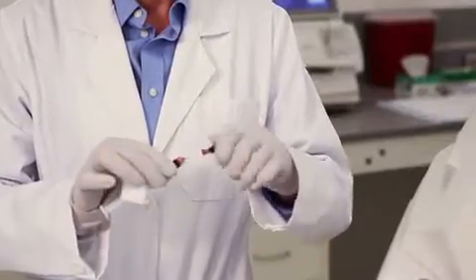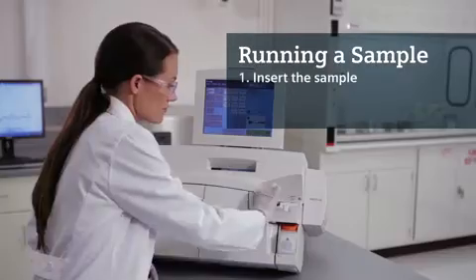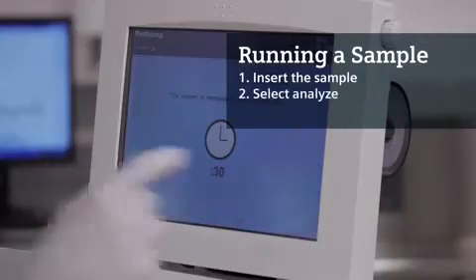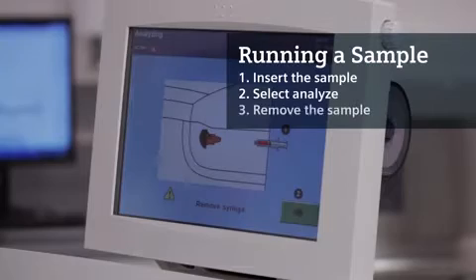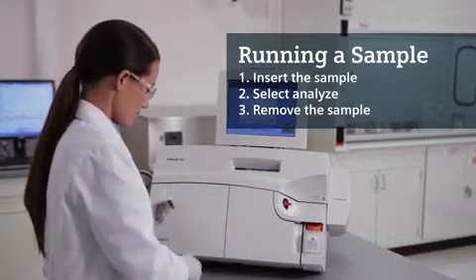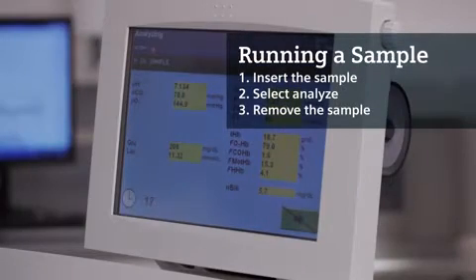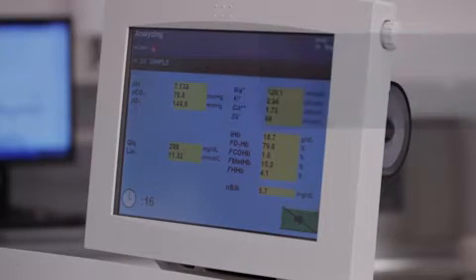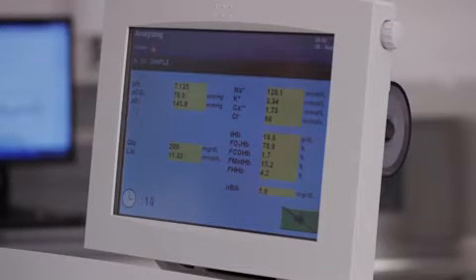Running a sample on the RapidLab 1200 system is easy. Simply insert your sample, select analyze, and remove your sample. In three steps and just 60 seconds later, the patient sample is analyzed and results are available.